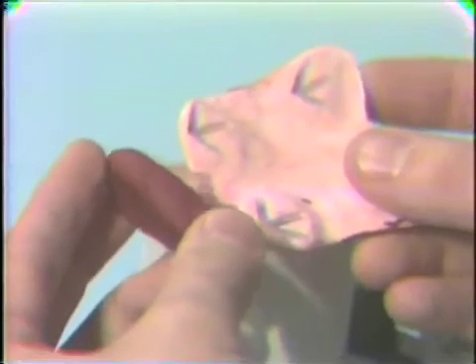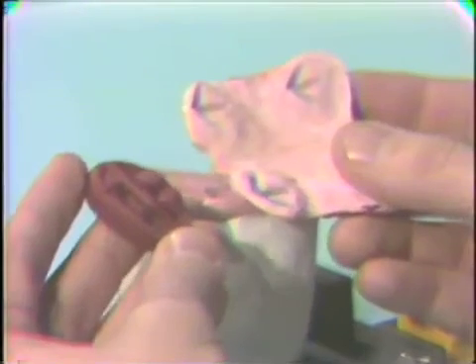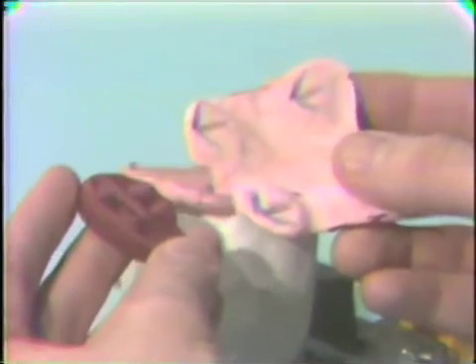This we did by just heating compound, placing the patient's jaw in the centric relation position, which would correspond to the apex of our tracings here, or our stereographic recordings. And we just heat the compound and put it on the front part of the clutches while they're in the patient's mouth. This is used, as we mentioned, as a guide in mounting the mandibular clutch.